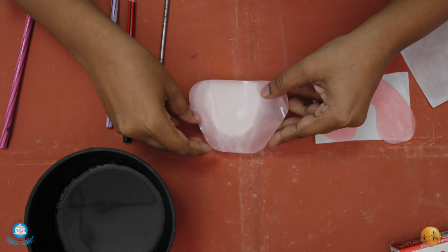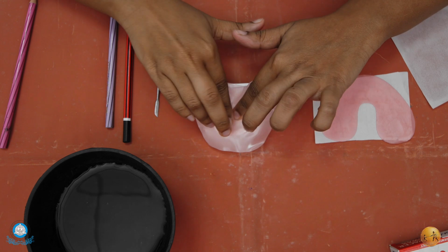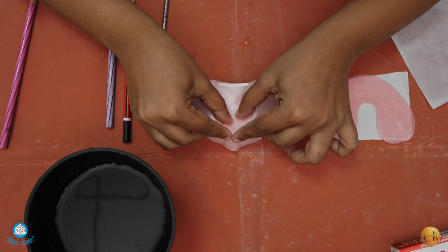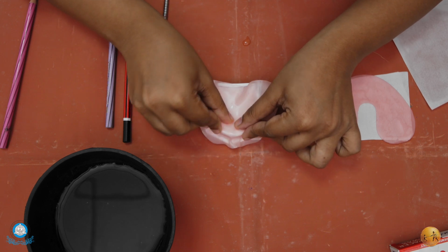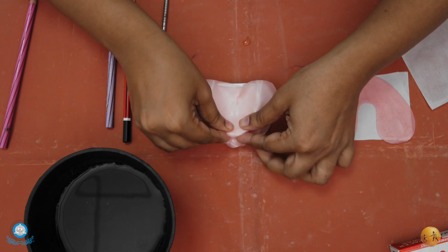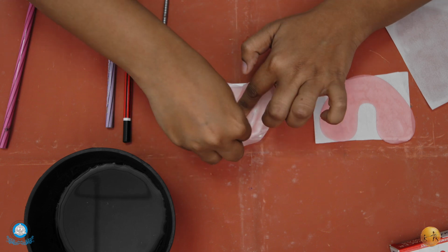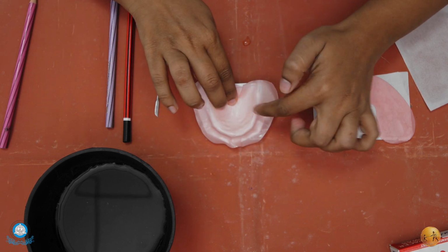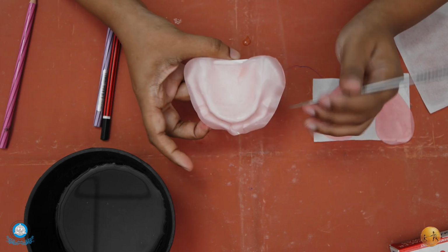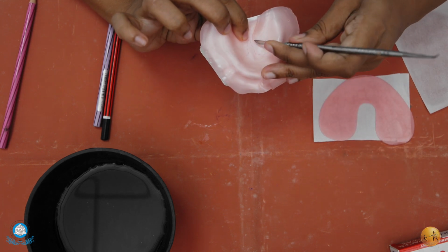Once it is softened, we are going to adapt it onto the maxillary cast, starting from the palatal area towards the edges. With the fingers, we are going to mold the wax onto the cast. As the wax is well molded onto the cast, you can see the dotted lines which we already put for the placement of our spacers. Now we are going to cut the spacer along these dotted lines.